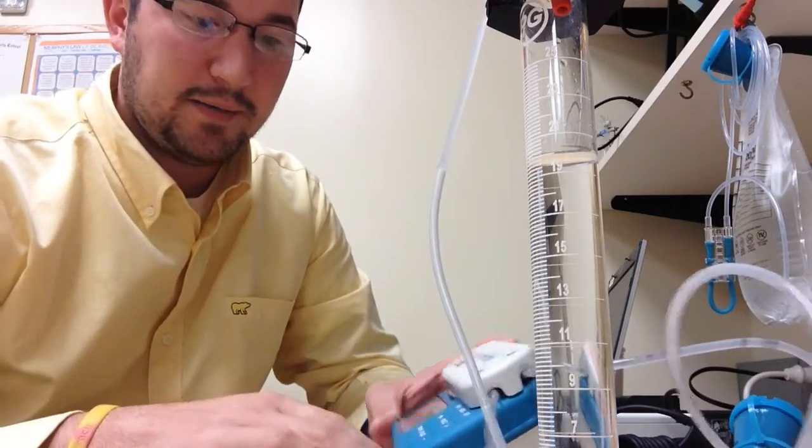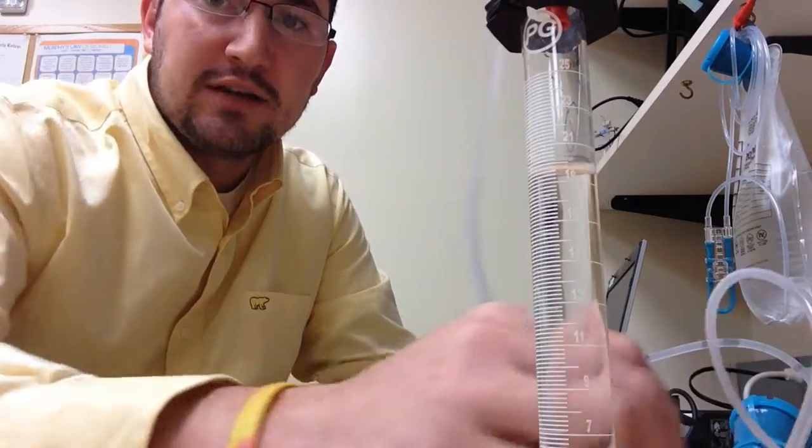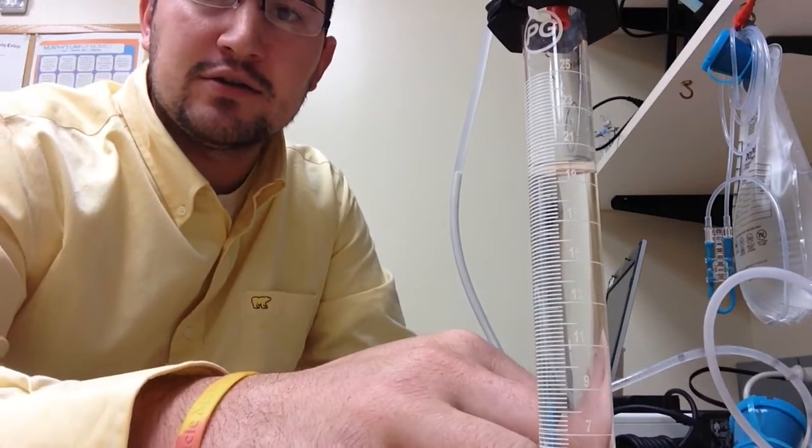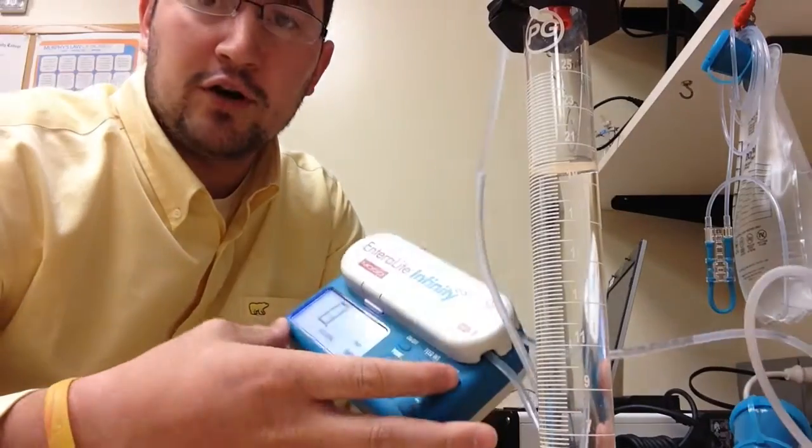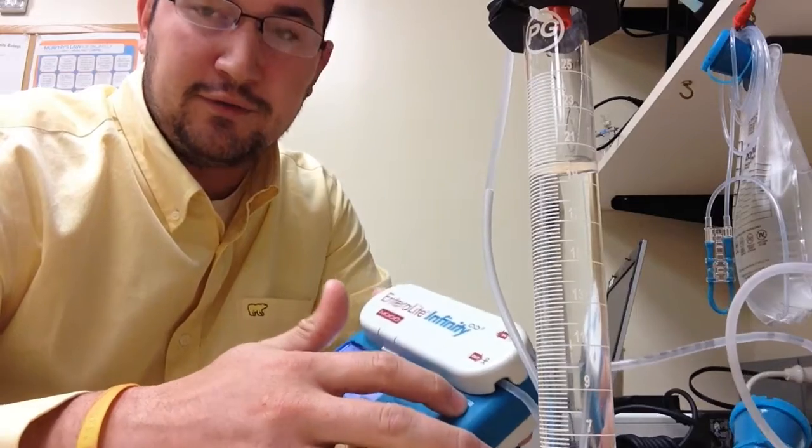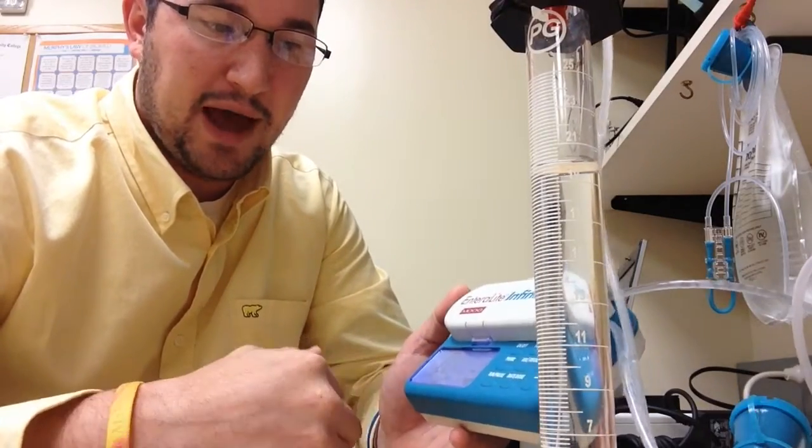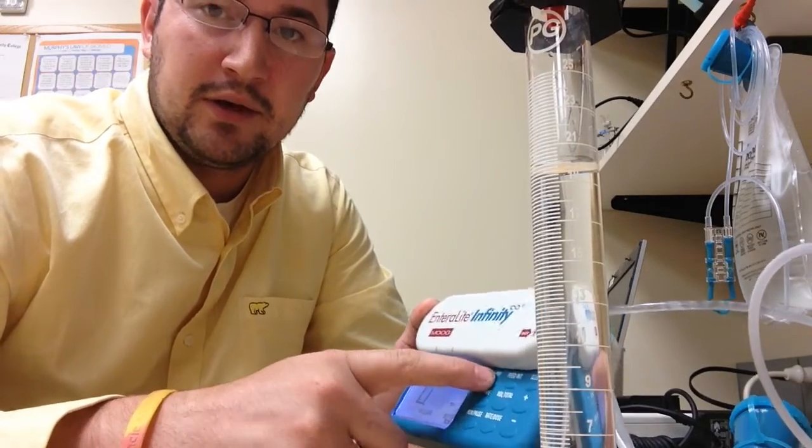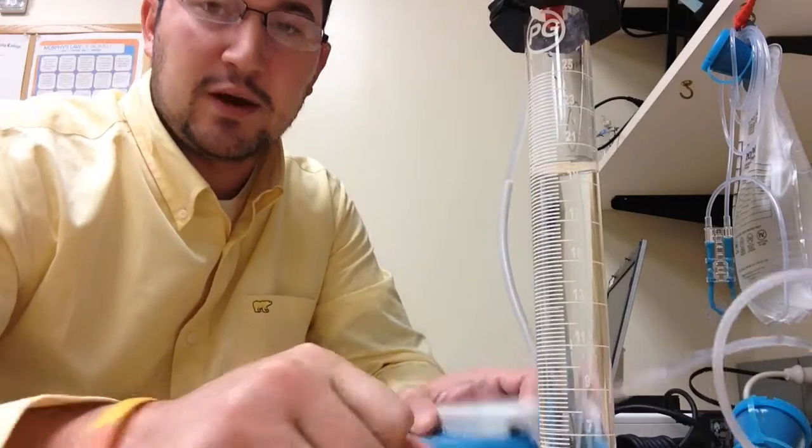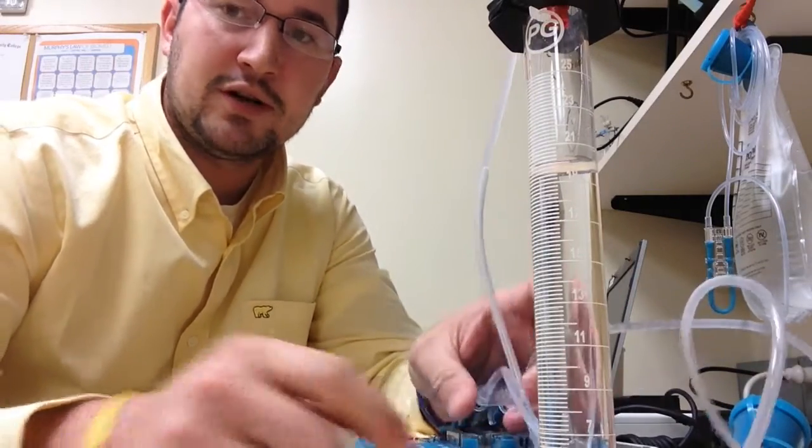And just hit run pause and I will be back when it's finished infusing. The pump is finished infusing, we have exactly 20 milliliters on this infusion with a give or take one milliliter, so you can be as low as 19 and as high as 21. The last thing you want to do is clear out your total volume and your volume for the infusion. And once you're finished, battery tested out just fine. Other than that, you're good to go and you can shut it off and it's ready to send out to the next patient. Hope you enjoyed, thanks.